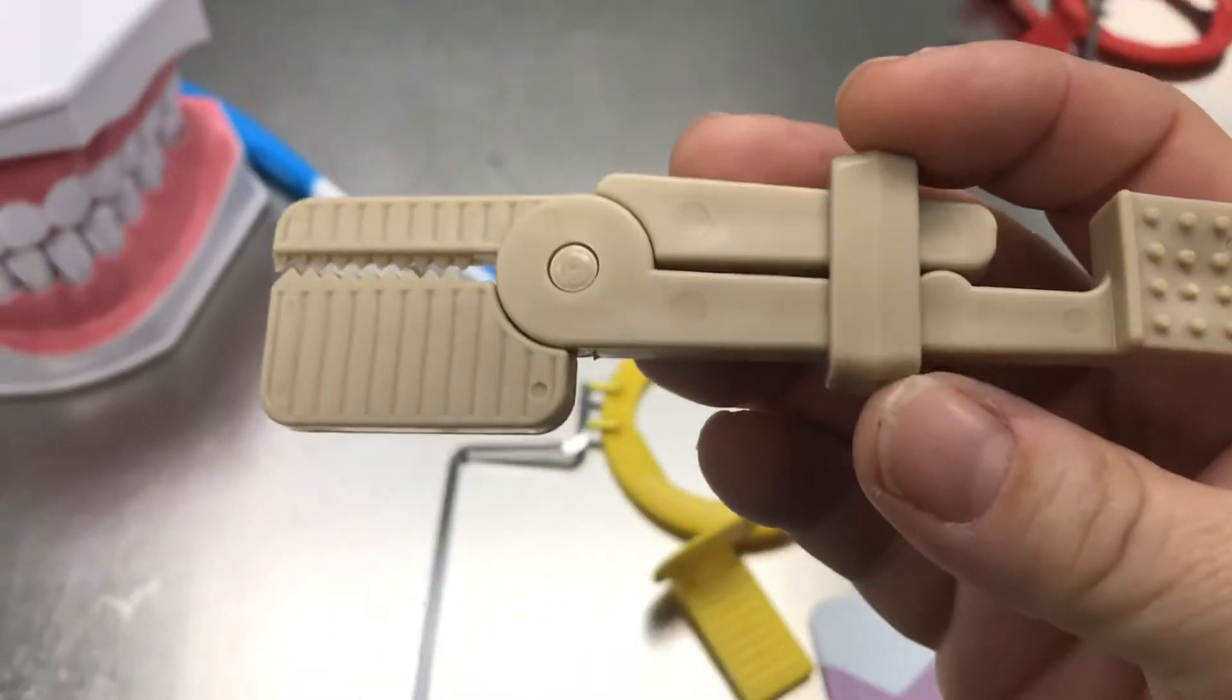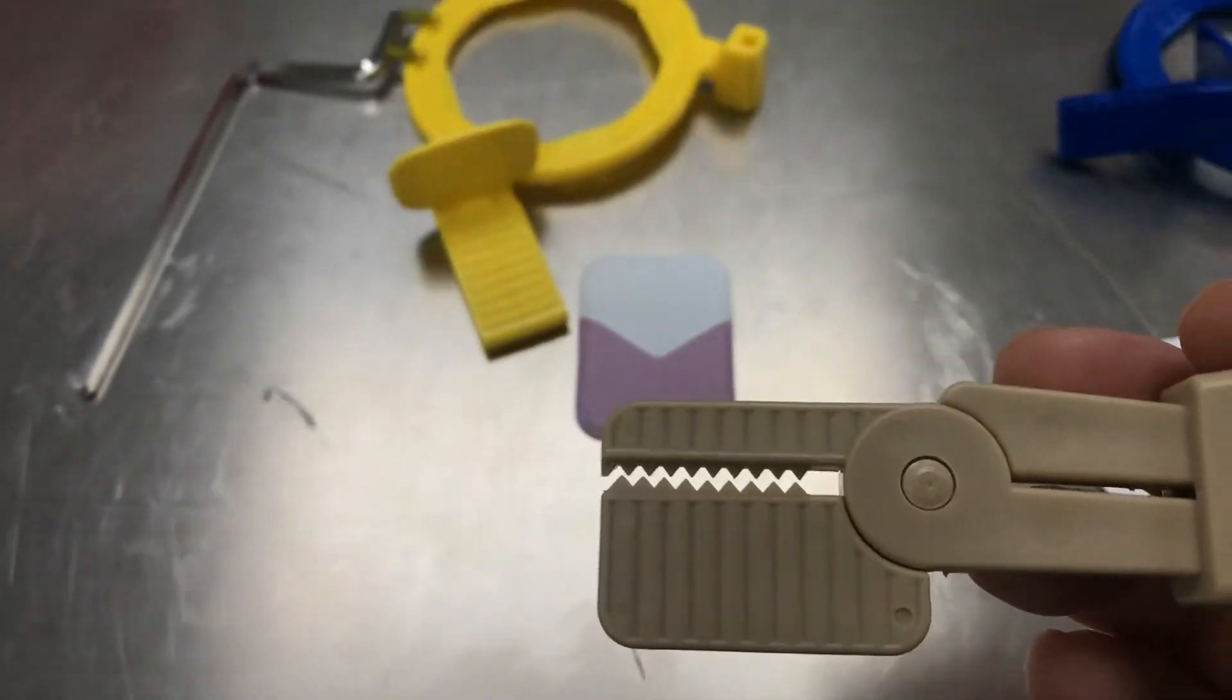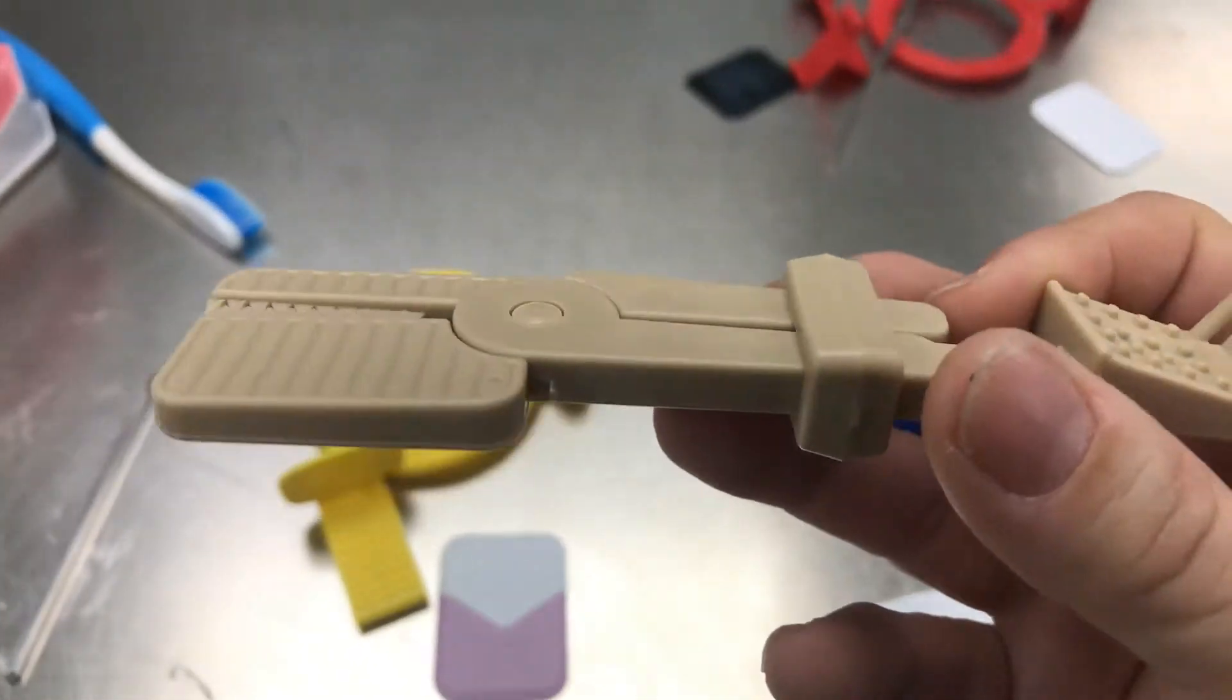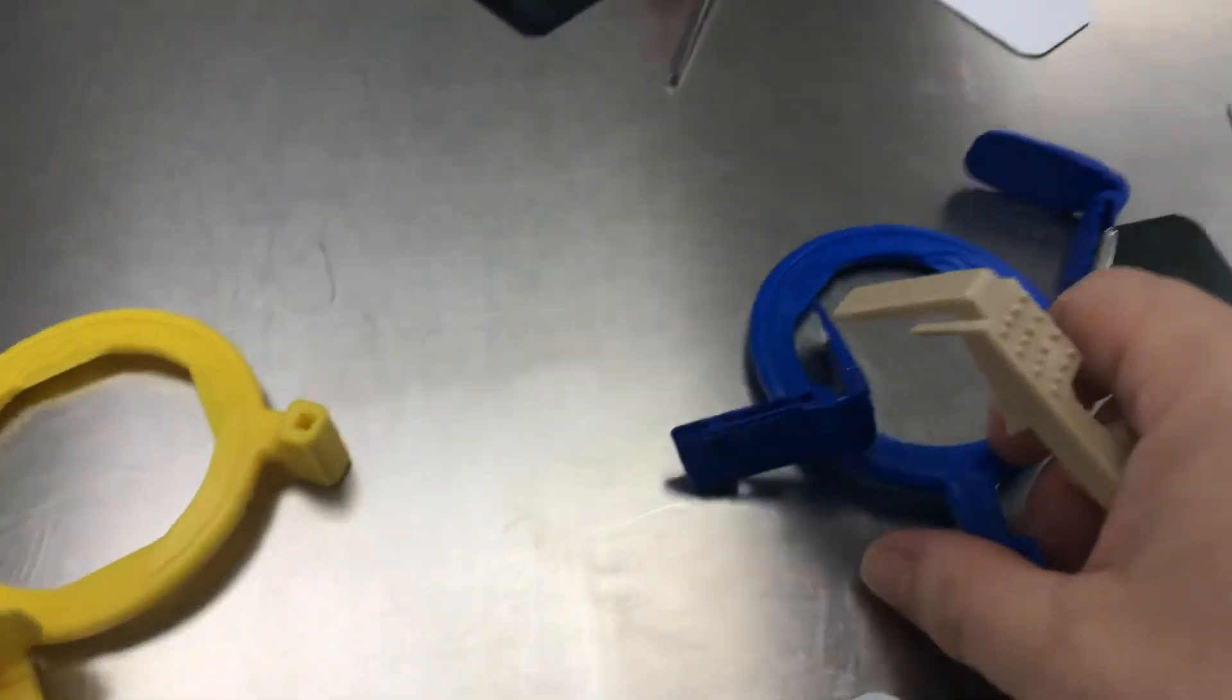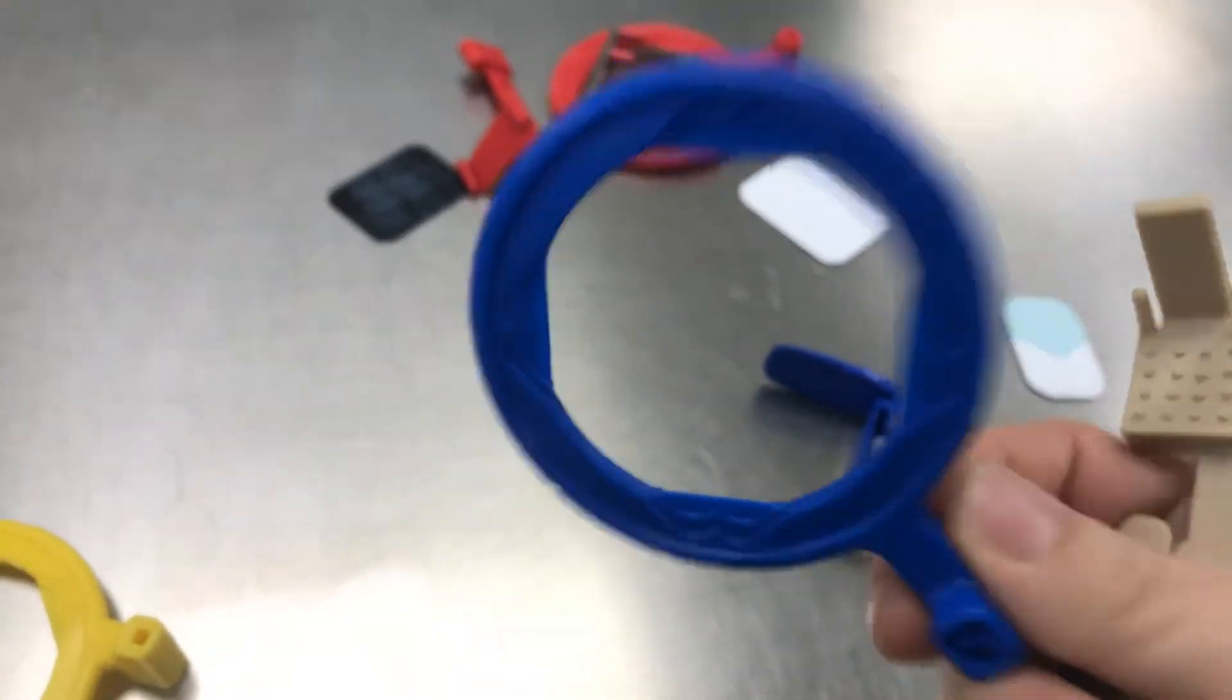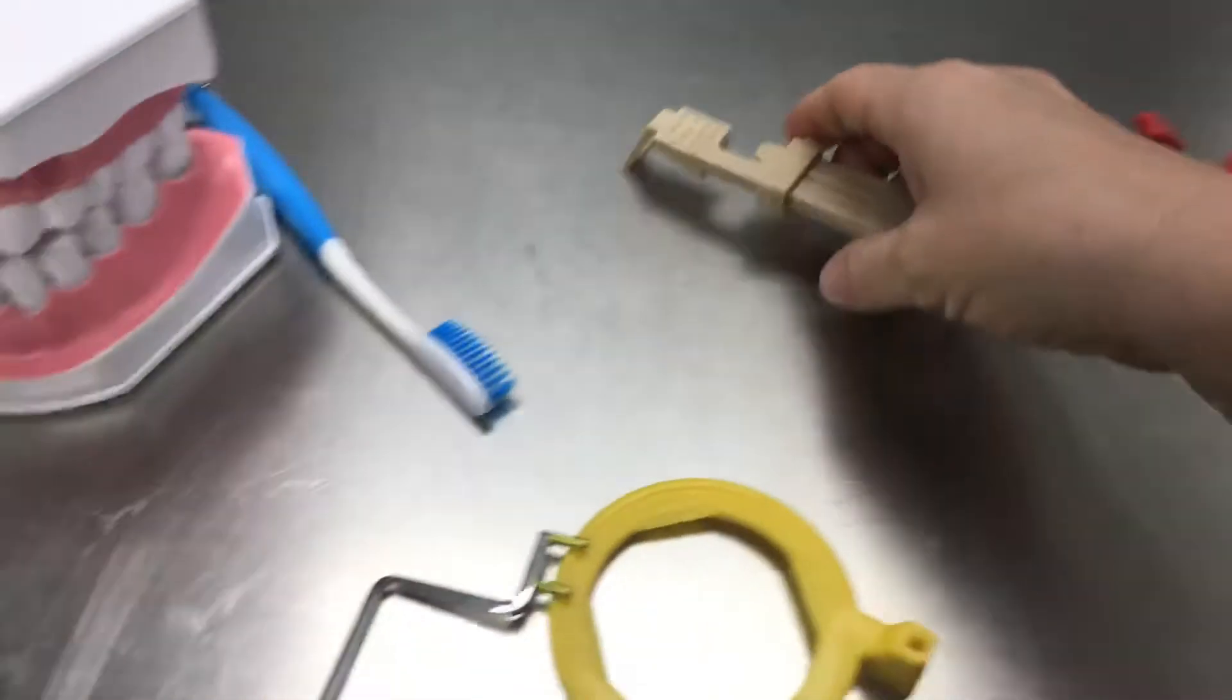So the difference with this is, I used to have to figure out where the teeth were and where to aim. But these are a lot easier, and this tells you where to aim. So y'all have it a little better nowadays.